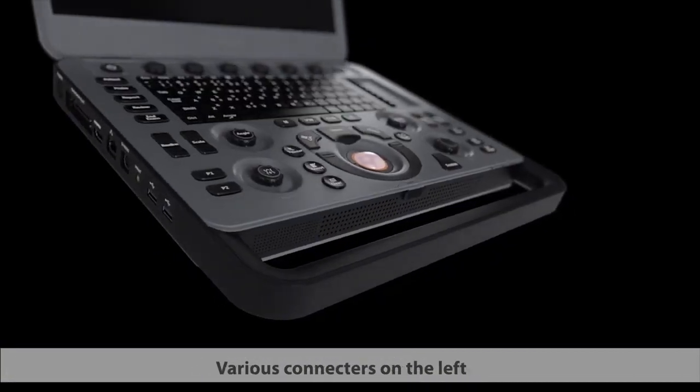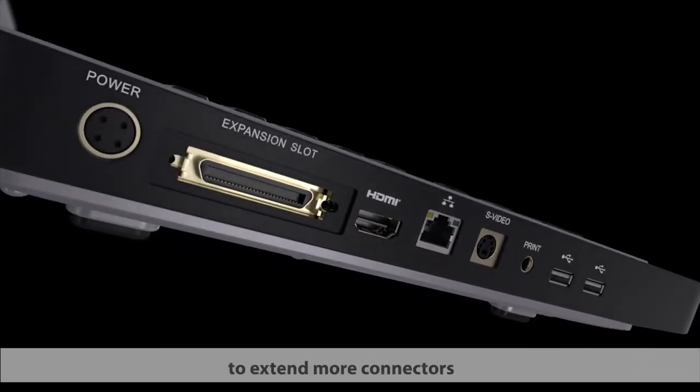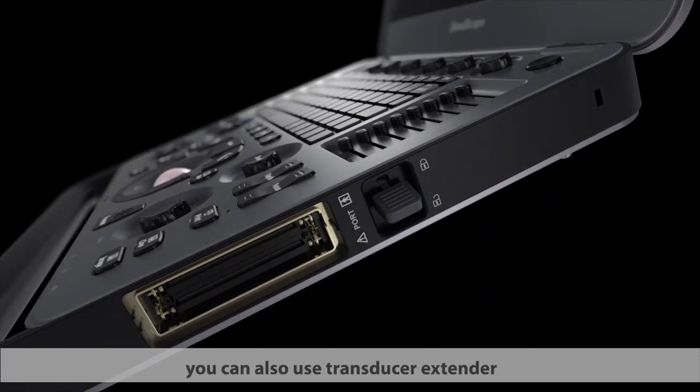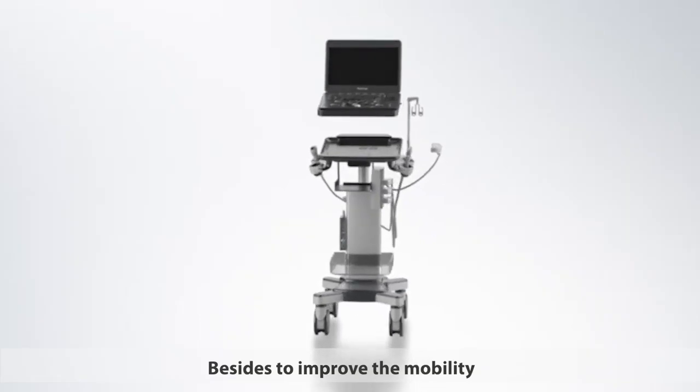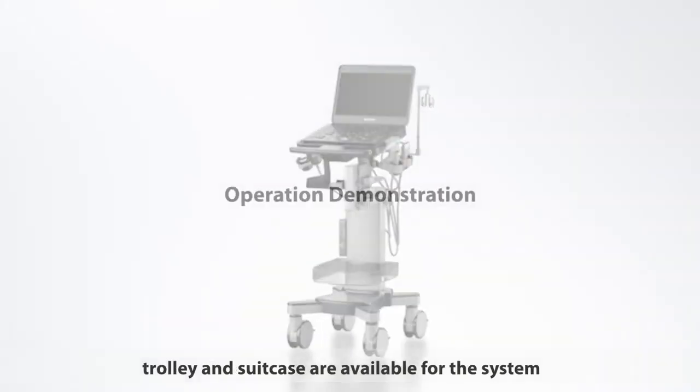Various connectors on the left, you can also use I/O docking to extend more connectors. Transducer connector is on the right. You can also use transducer extender to extend to 3 ports. Besides, to improve the mobility, trolley and suitcase are available for the system.